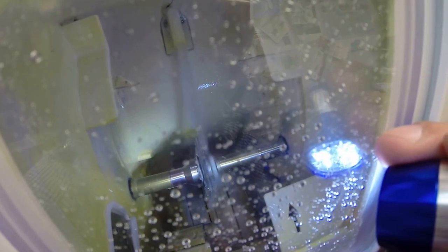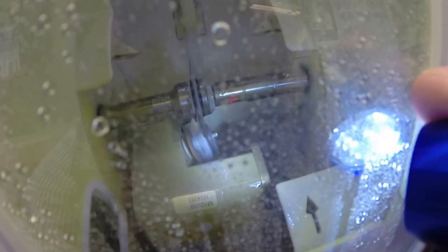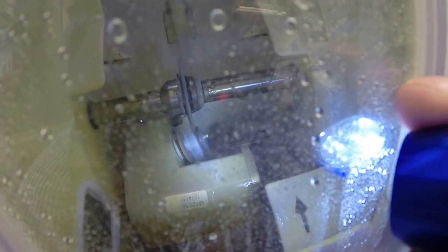Now if you notice, water has begun spraying on the lens. It does it for the last 20 seconds of the cutting cycle, just to wash away any optical debris. That arm is moving into place. At the end of that arm is a little spinning wheel like you find on a dremel tool. And it is now applying the safety bevel to your lens, the rear surface of the lens, just to smooth out any roughness that may be left over from the cutting cycle.